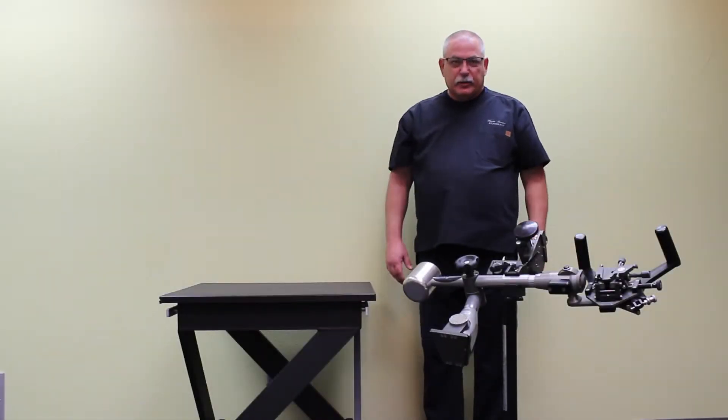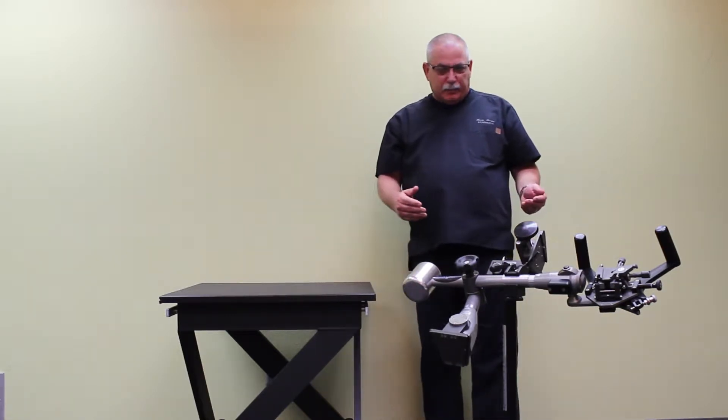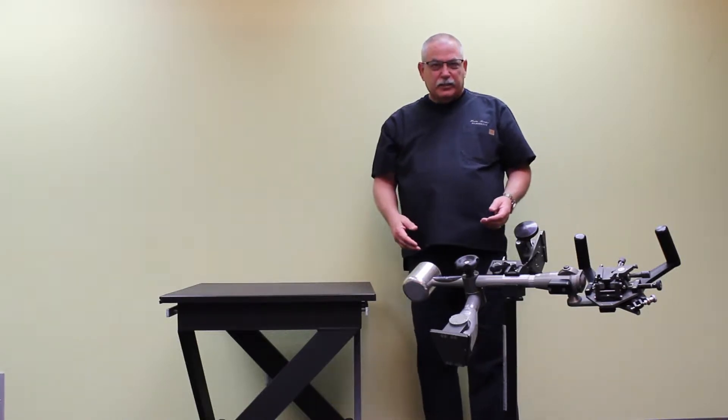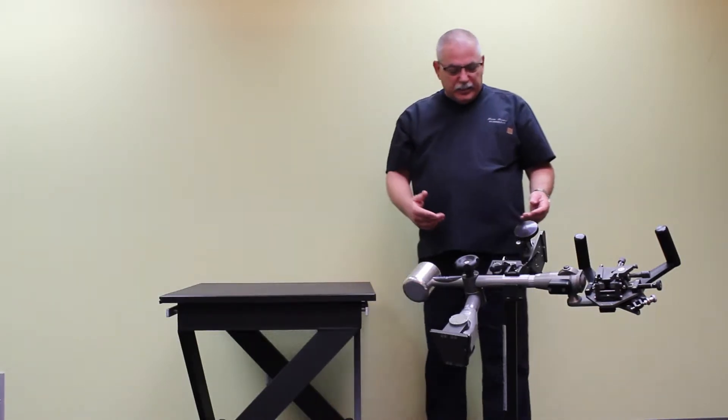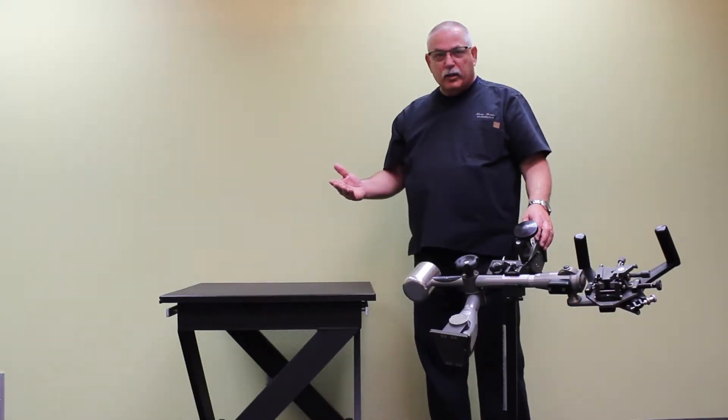Next, I'm going to demonstrate how to assemble the micro touch LP. There are a few differences between the micro touch stabilizer and the micro touch LP stabilizer. The LP, by the way, just stands for low profile. First is the mounting. The micro touch LP mounts on one side of your table or the other. It can actually be configured whichever way you desire.